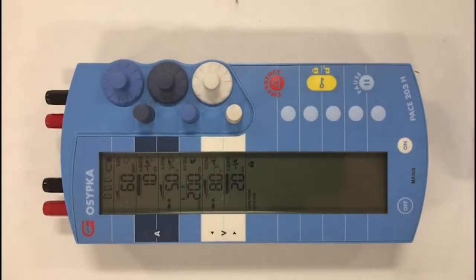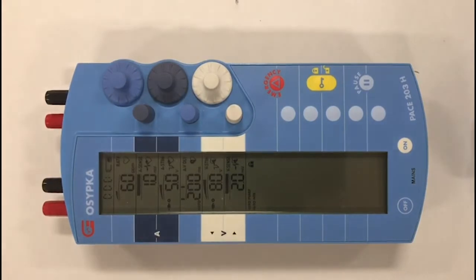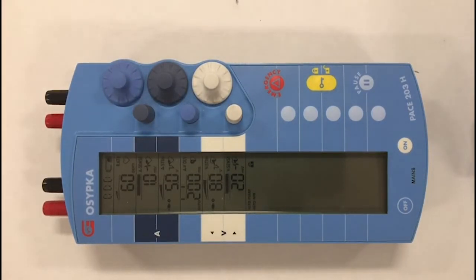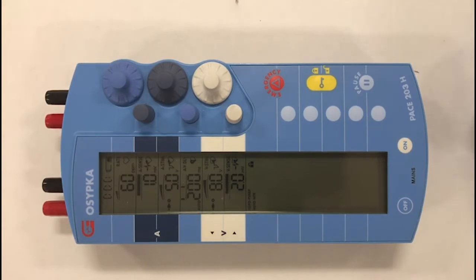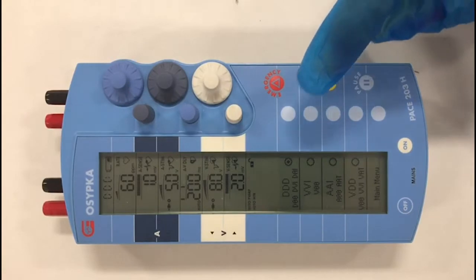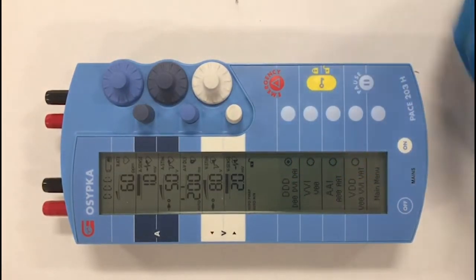When the device is turned on, the default mode is Dual Chamber Pacing or DDD. To change the mode to a single chamber mode of pacing, I press the yellow button, and that will allow a series of menus of modes to appear at the bottom.